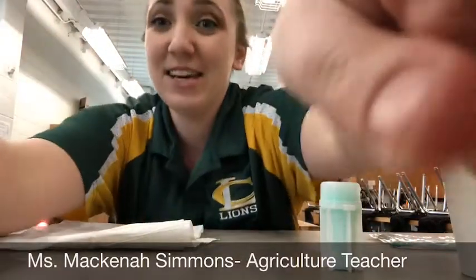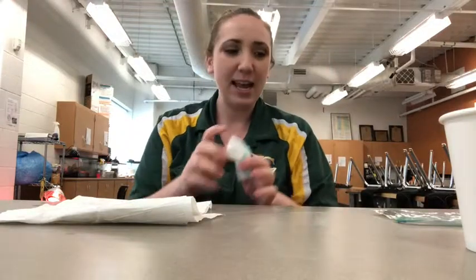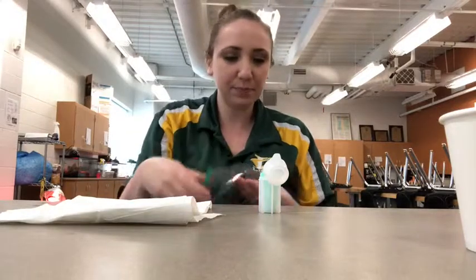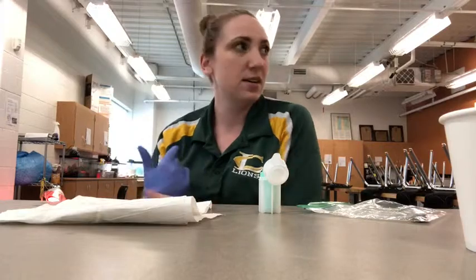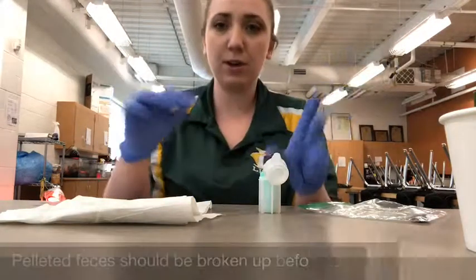The first step in starting your fecal flotation is getting your sample ready. So we're going to go ahead and get our sample ready for our fecal flotation test. I have my fecalyzer and I have my fecal sample from a rabbit. So the first step is protection, wearing gloves. Thankfully, this surface is easy to clean. You wouldn't want to do this on a porous surface. Try and keep things as sanitary as possible. All right, so my gloves are on.